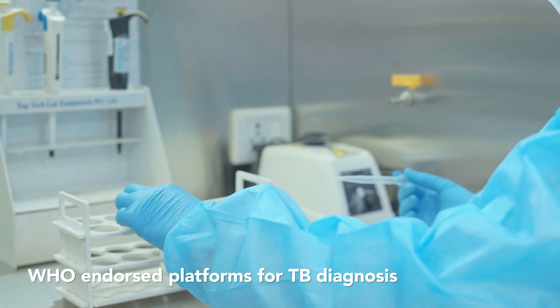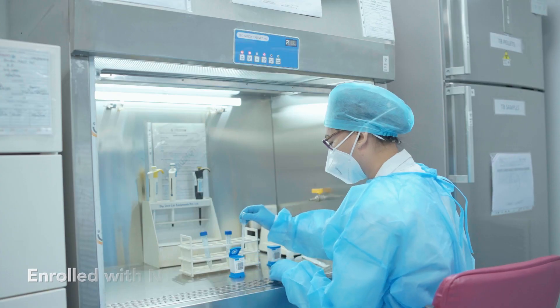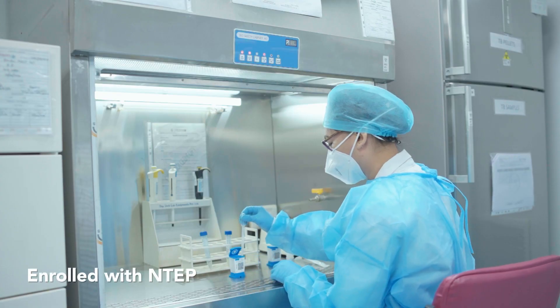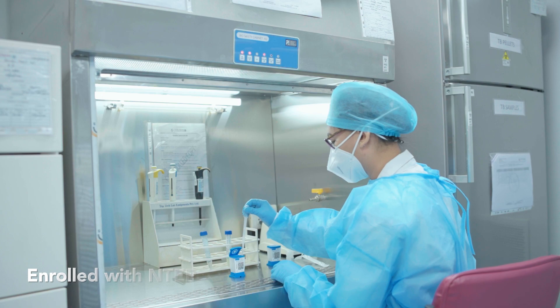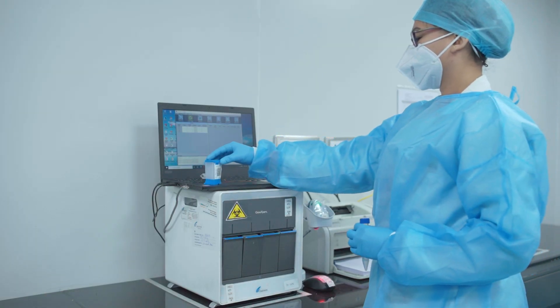For routine swift TB diagnosis, we use the Cepheid GeneXpert Ultra, which has 10 times better analytical sensitivity than the traditional GeneXpert platform. We also use the GeneXpert XDR.